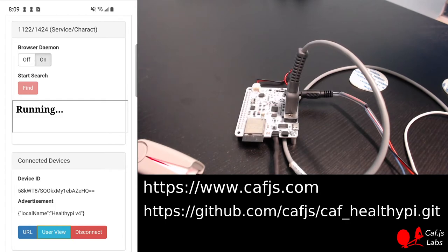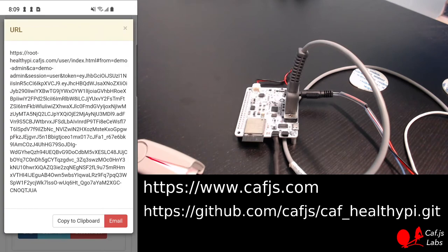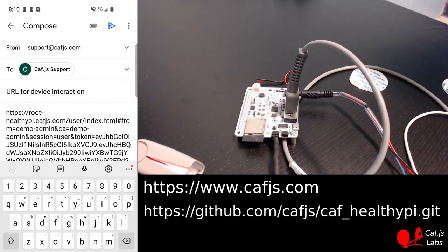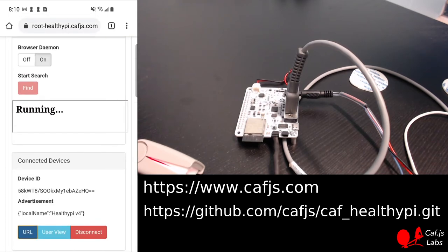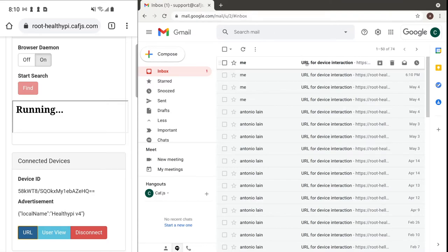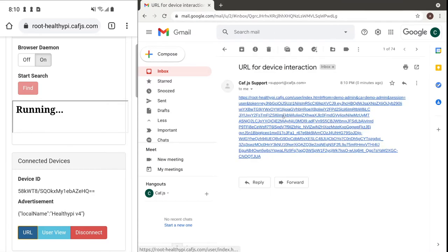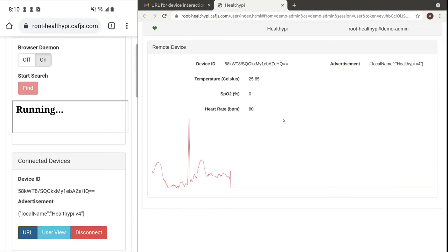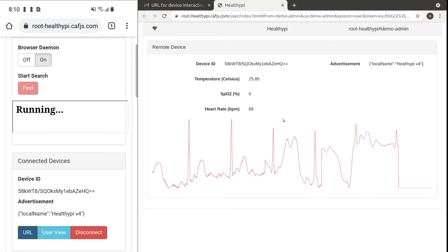But what is a bit more interesting is to be able to share that information with the doctor. So I just have to email to my doctor that very long URL that will give access to the device remotely. I switch to my email and there is a new URL, and when the doctor clicks on it, it will connect and you will see my heart in real time.